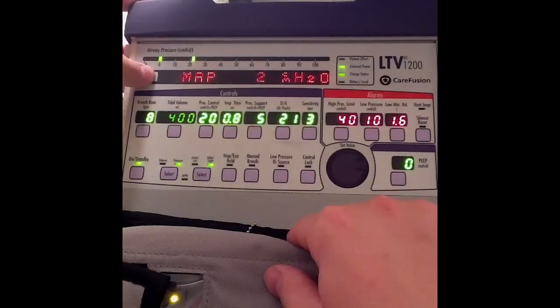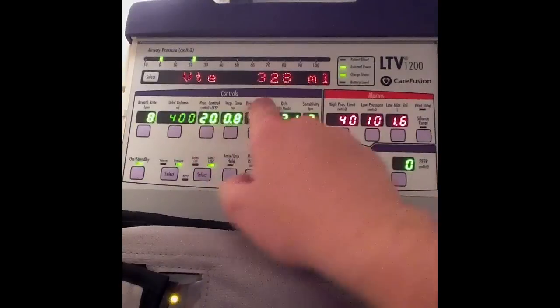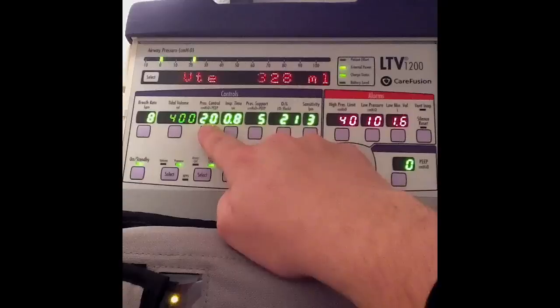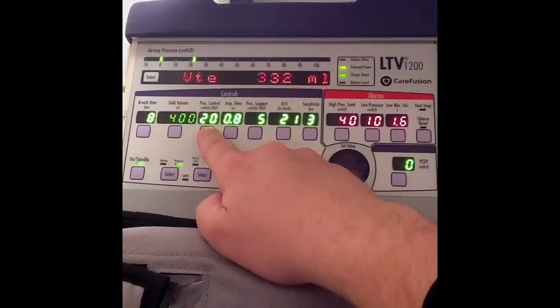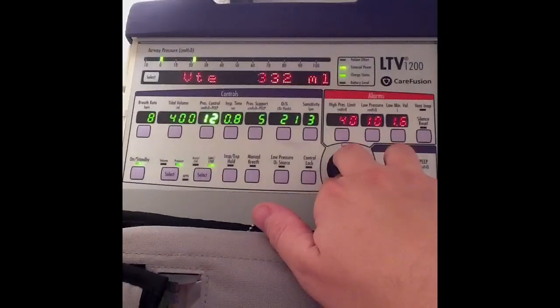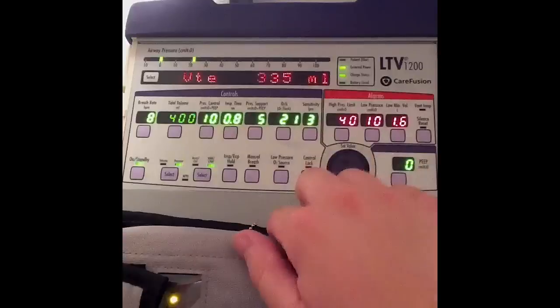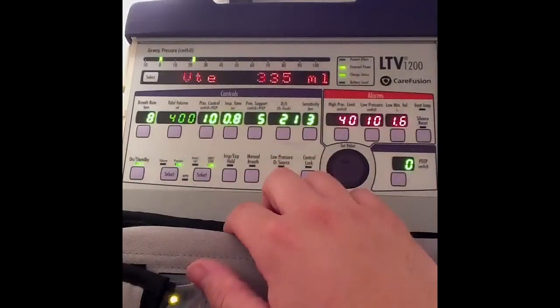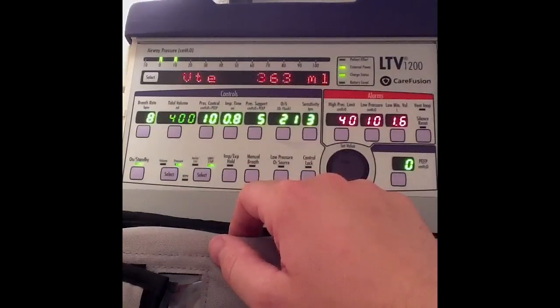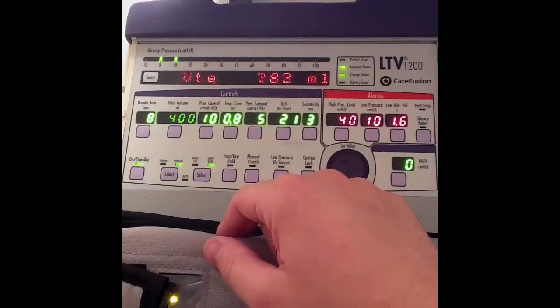Let's go ahead and monitor our exhaled tidal volume. Right now I have an exhaled tidal volume of 328 milliliters with 20 of pressure control. I'm going to select pressure control and decrease the pressure to 10. I should expect my tidal volume to decrease with the pressure — we can't directly affect tidal volume, but we can monitor it. You can see it's already decreasing.